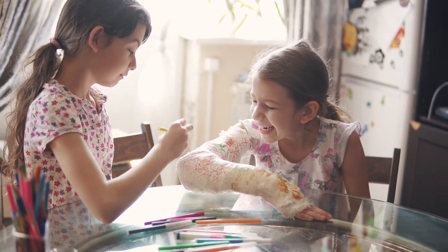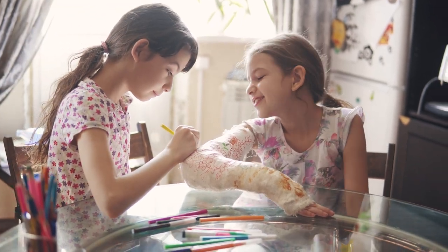Casts have kind of a romantic spot in our hearts. When you have a broken wrist, you get to have everybody sign your cast and use sharpies to draw hearts on you and everything else, and everybody has a big old laugh.